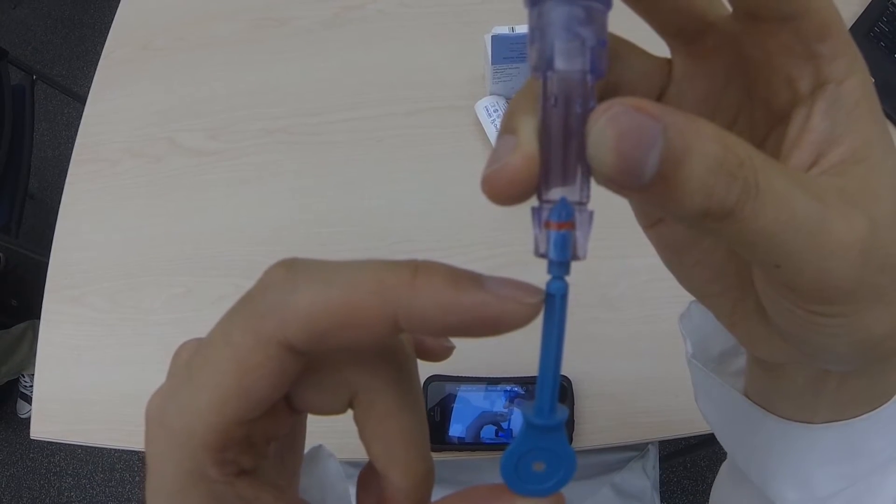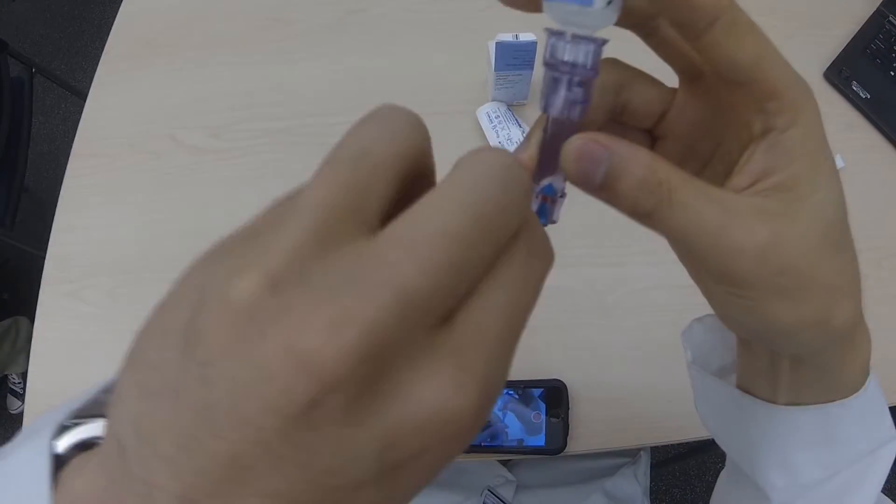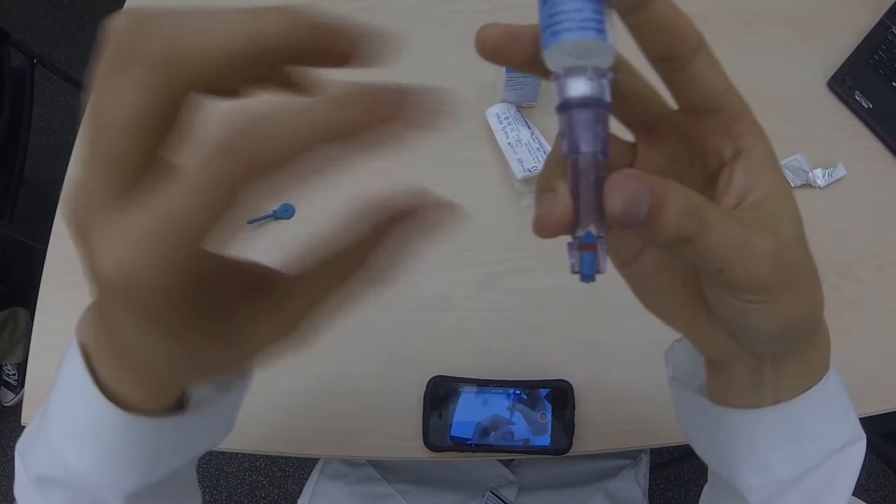Towards the upper end of the blue plunger, there's a small wedge that indicates where it can be broken. Break this part of the plunger off to leave the syringe plugged up.